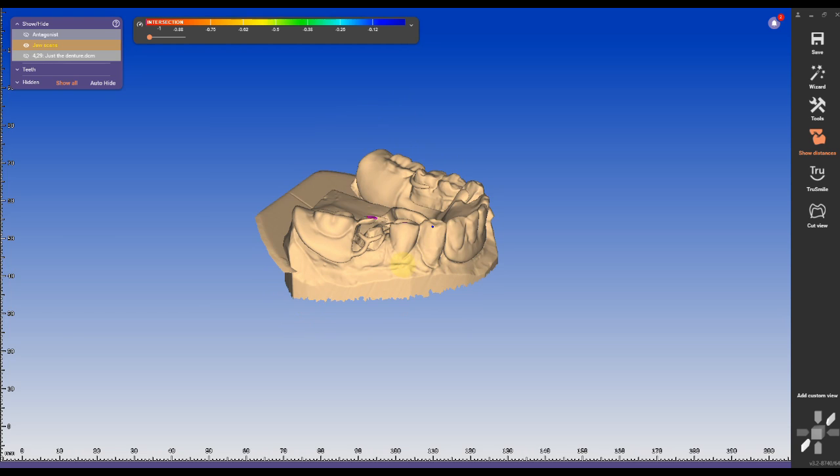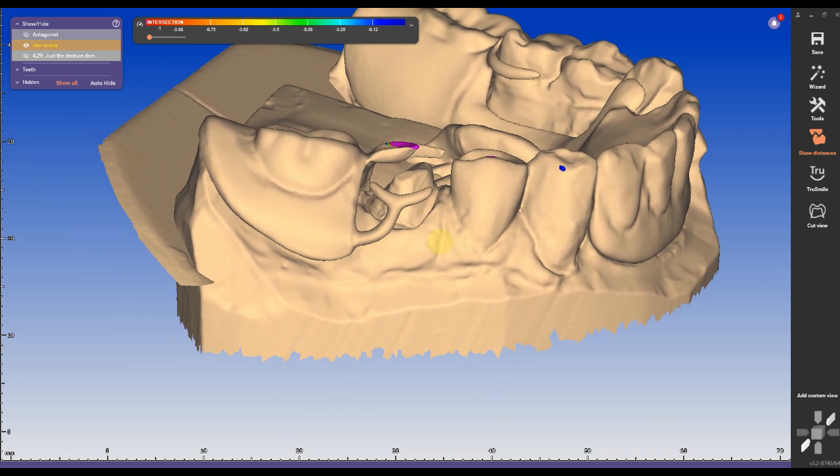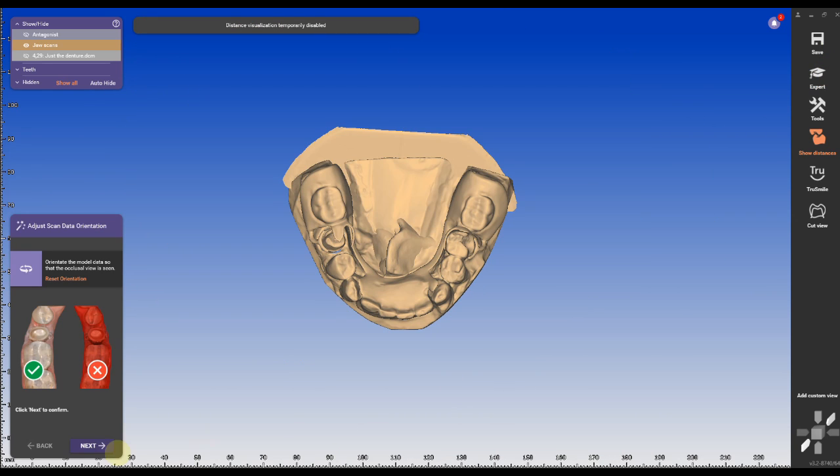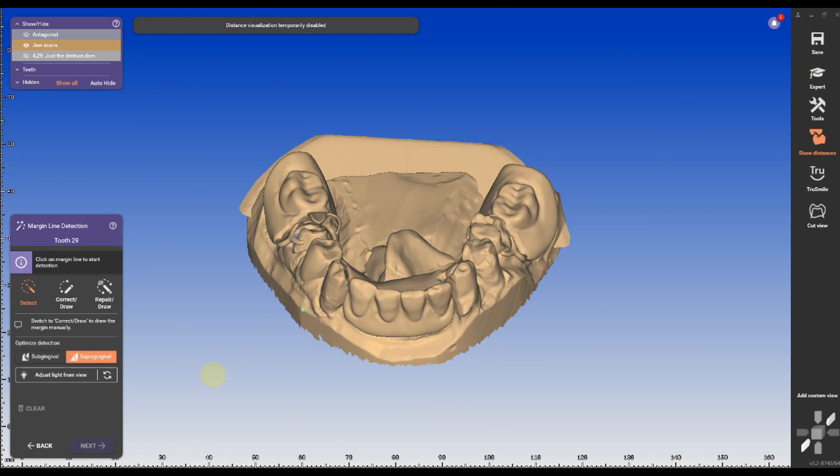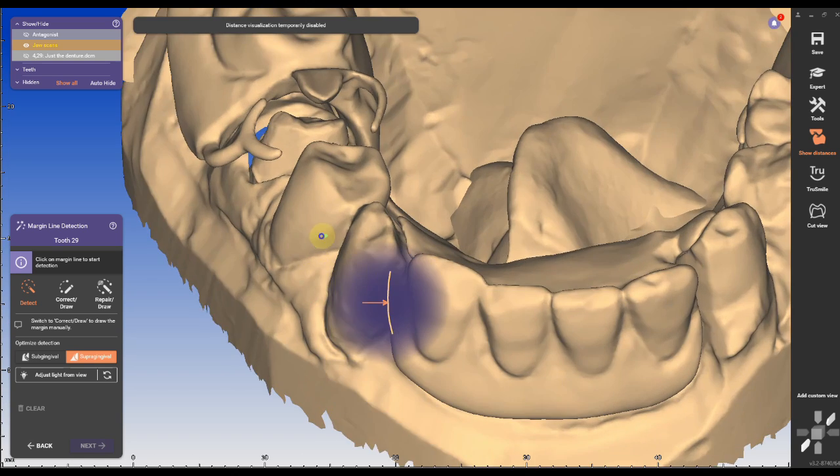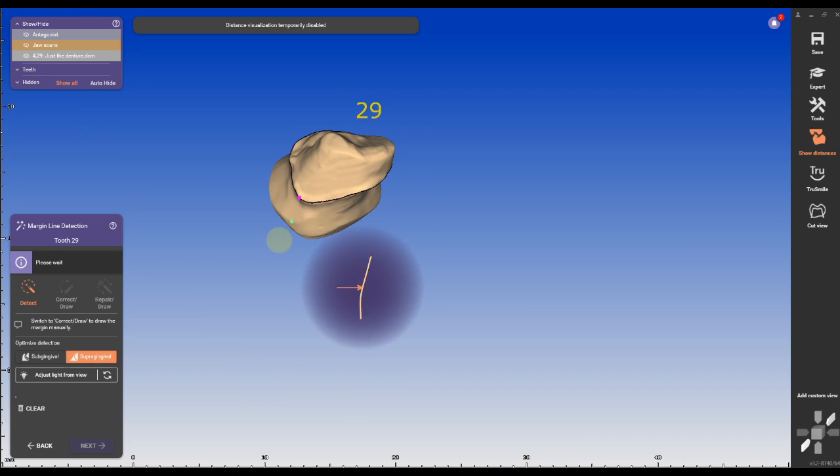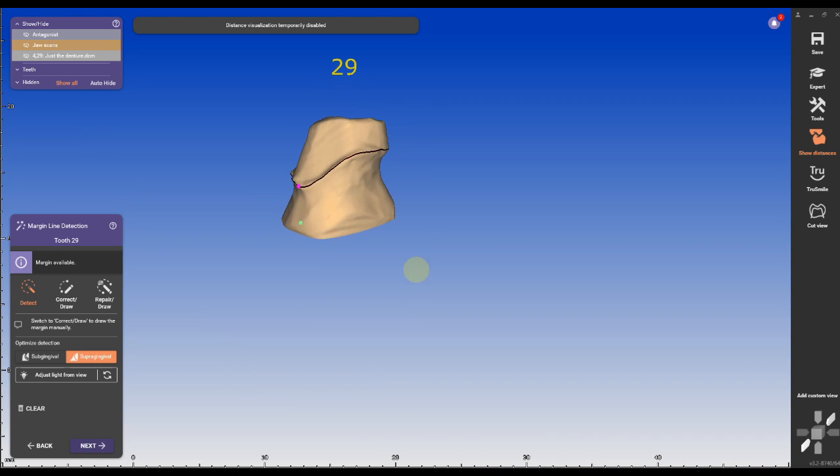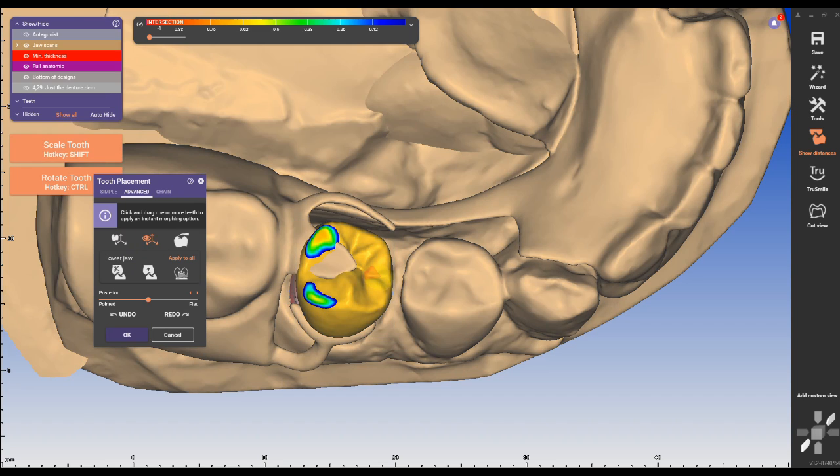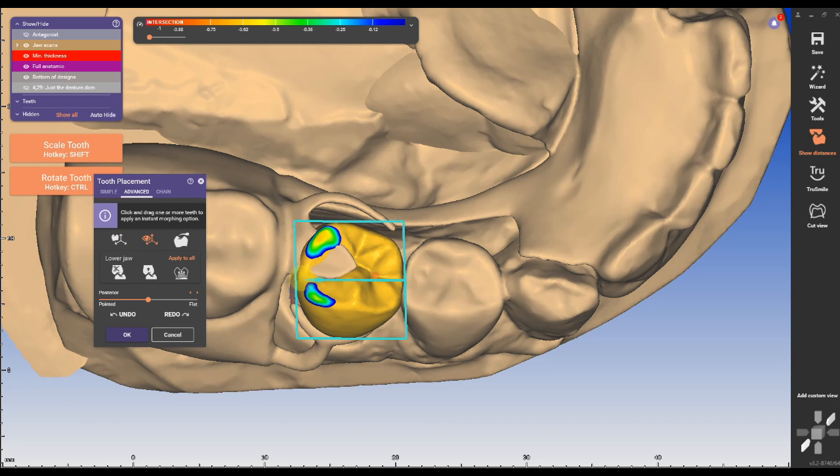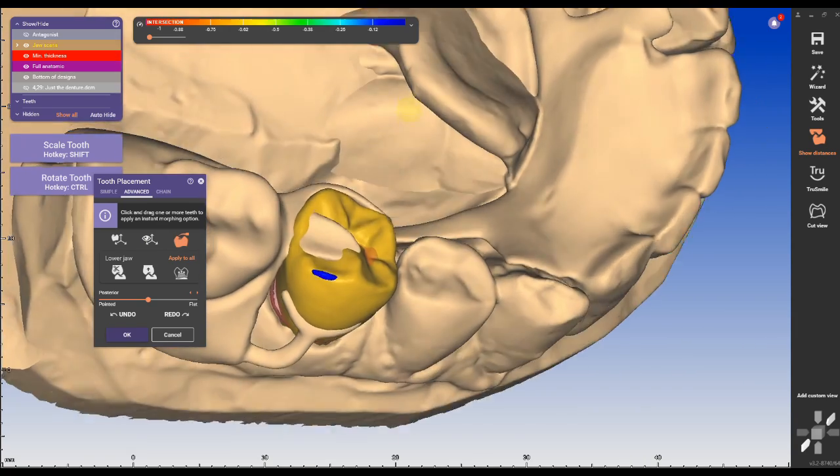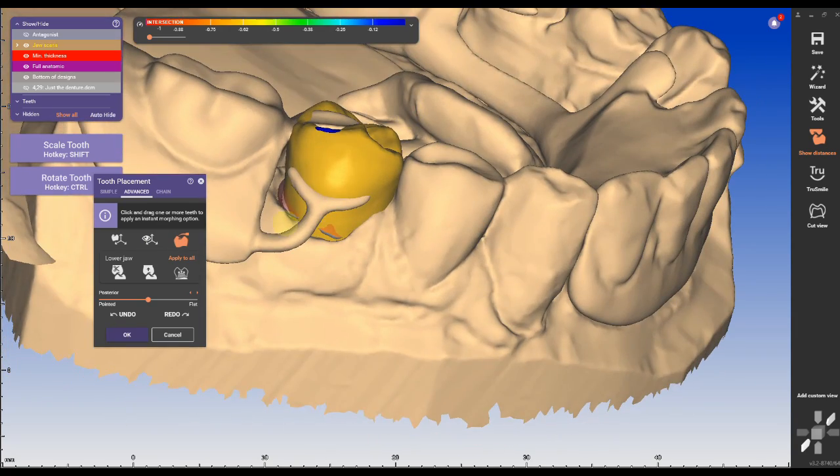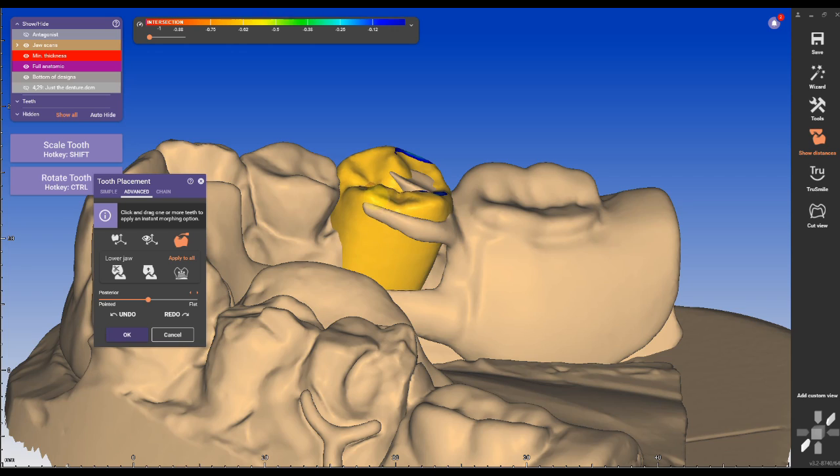Now that we have a new preparation scan with a clean partial scan, especially the clasp, we can design our crown as usual. One of my favorite features in ExoCAD is probably the margin detection - it's very easy just by clicking on it under tooth placement. I'm usually using free axis scaling and holding the shift and control button as well as the instant morphing tool to position and cast and move tooth areas.